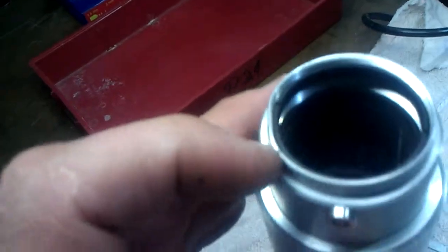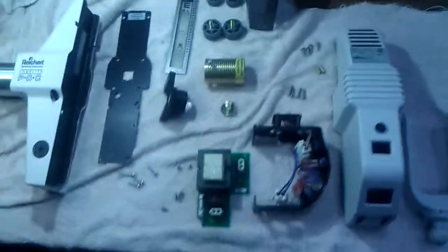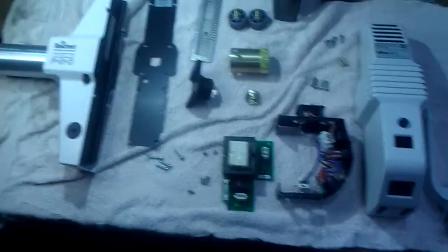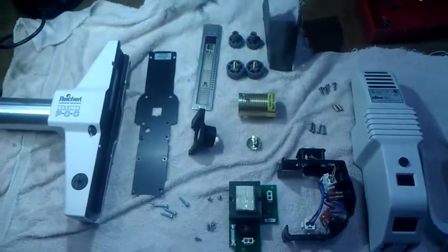You can see the front of this is a little bent, so it looks like it had gotten dropped. We need to finish straightening that out too. We'll put all this back together and the customer will have a like-new projector. Clean these optics and the reflector as well — totally refurbished, good as new.